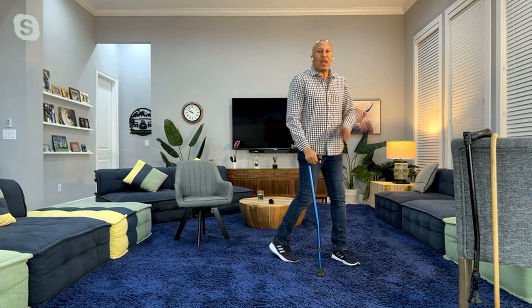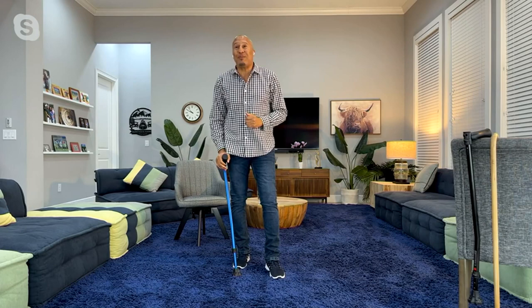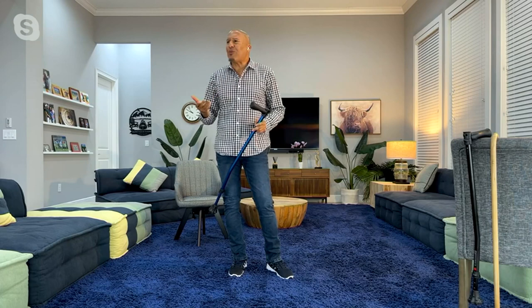Getting in your car, going to the grocery store — it's going to get you out of the house and get you some exercise. It did for me. I used it three weeks ago because I had some serious issues with my hips and my arthritis. All I'm saying here is that you deserve a better cane. If you've got one now, or you've got a mom, dad, grandma, aunt, uncle, brother, sister, anyone else that needs one, give them the gift of mobility.